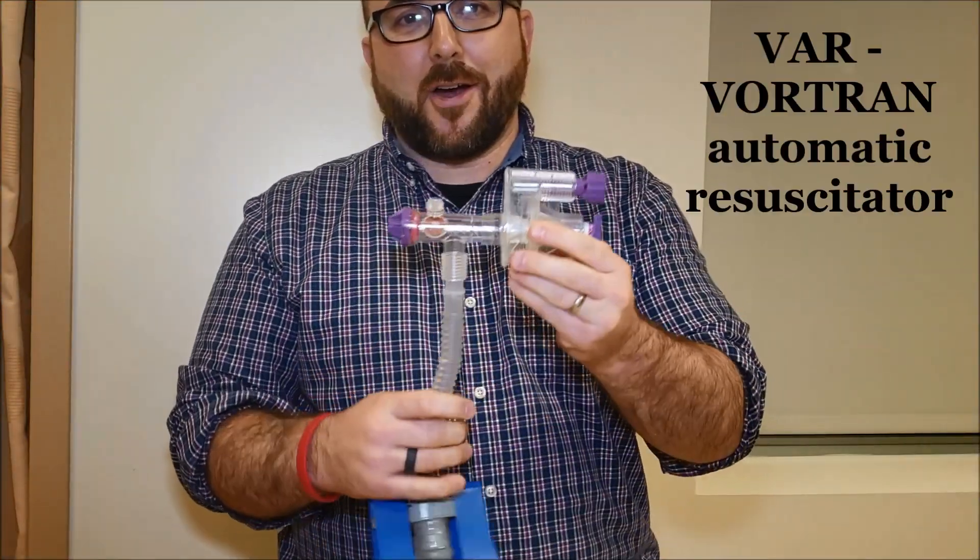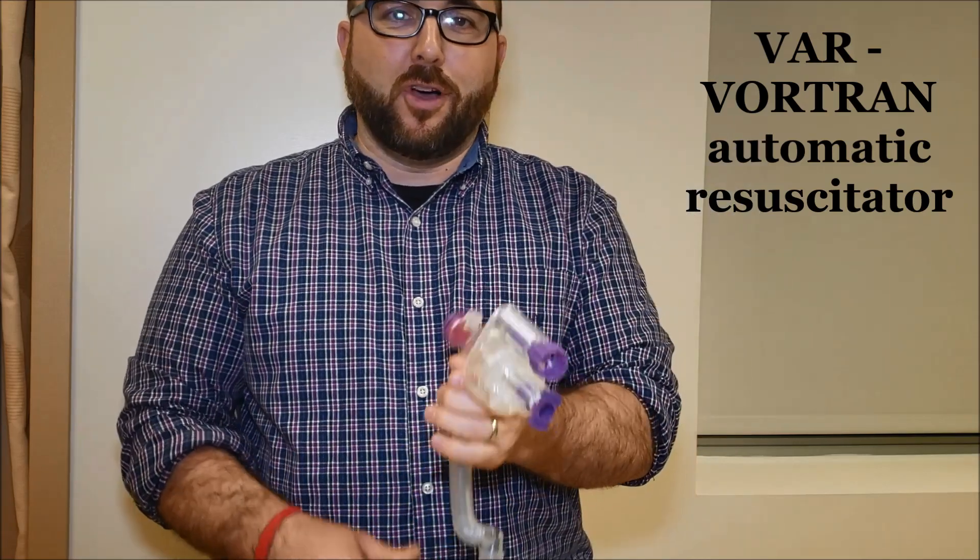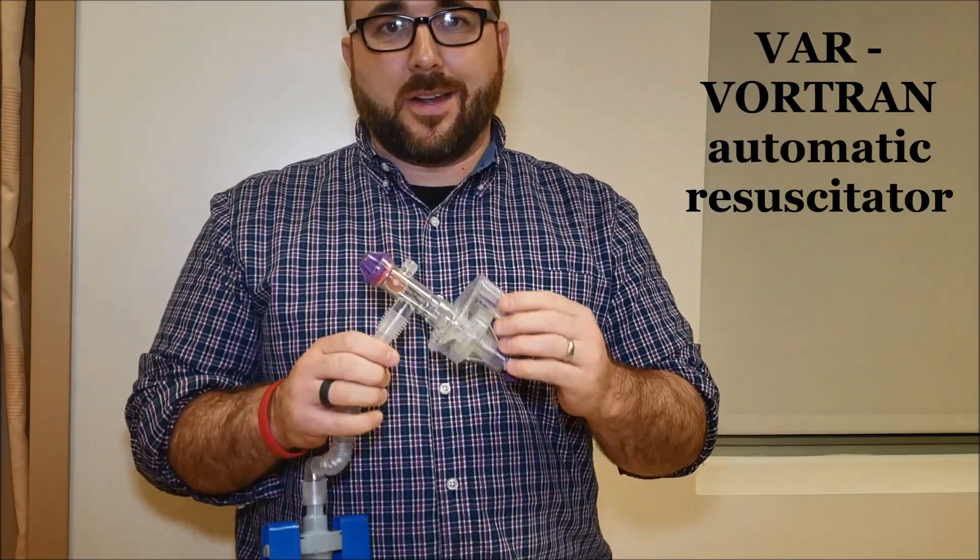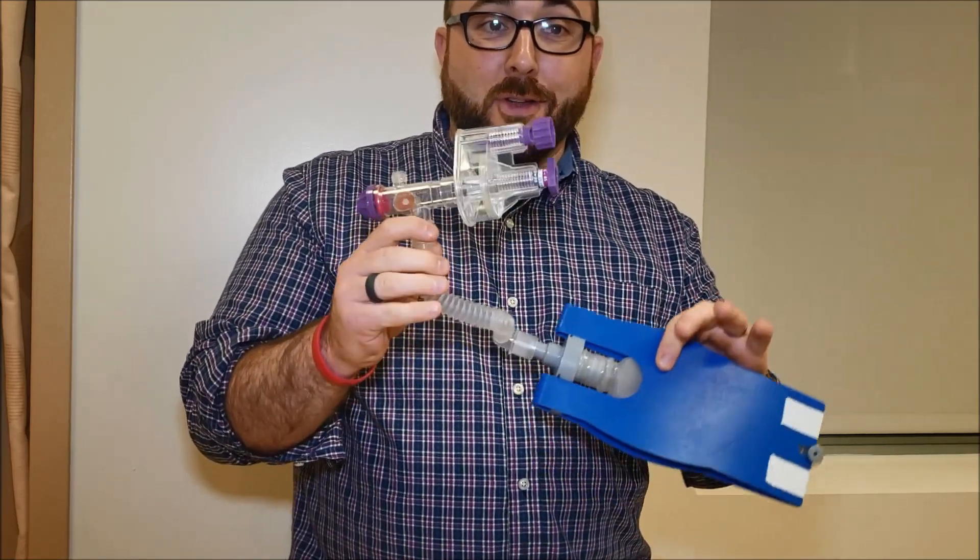Today guys we're unboxing the VAR, the Vortran automatic resuscitator. We're going to hook it up to the flow meter and I'm going to give you some quick tips on how to use this.